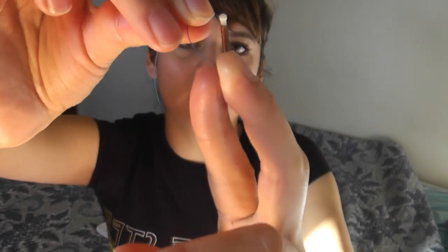I got a hold of the strings in my vagina, pulling on one like this — you won't really be able to get your thumb up there, so hold it between your index and middle finger and tug. I kept tugging as much as I could, and by the time I got my thumb around it, it was already out of my vagina. There was no pain at all — I just felt the strings on my finger and it was as simple as that.